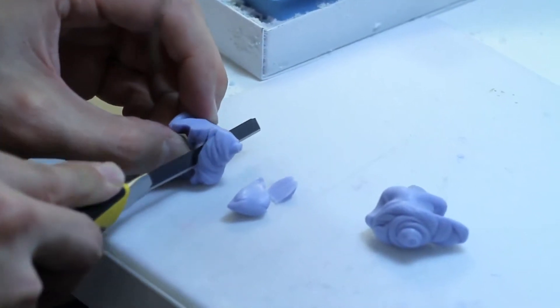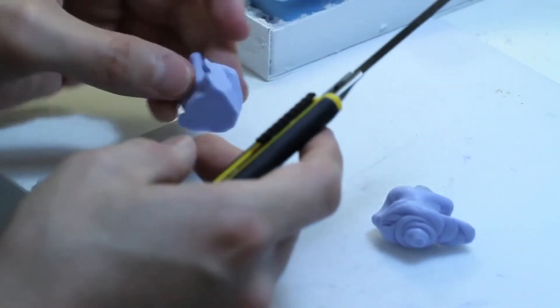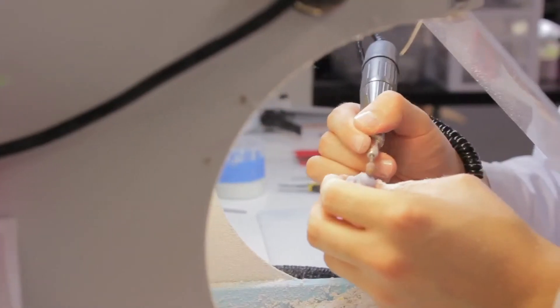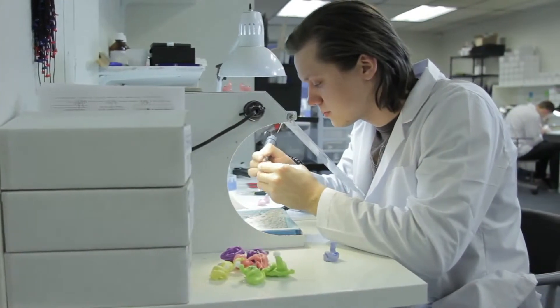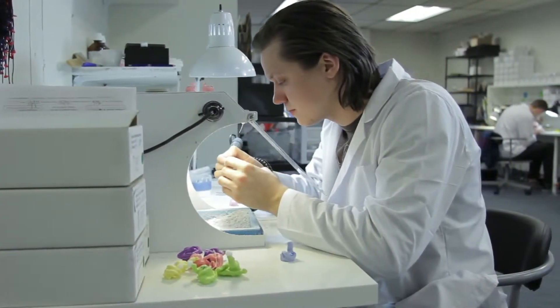After examining the impressions to make sure they fit our criteria, they undergo multiple stages of trimming and detailing. This detailing is done to make the final product look and feel great once they are in your ears.